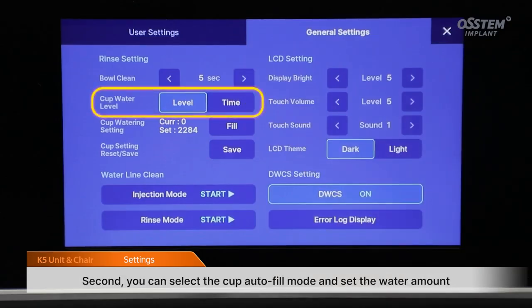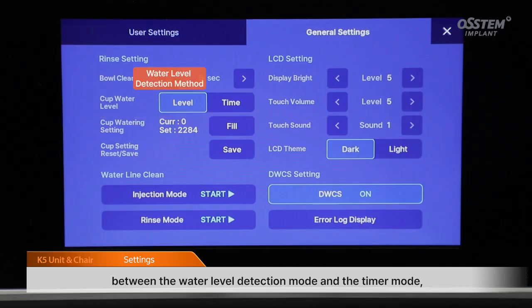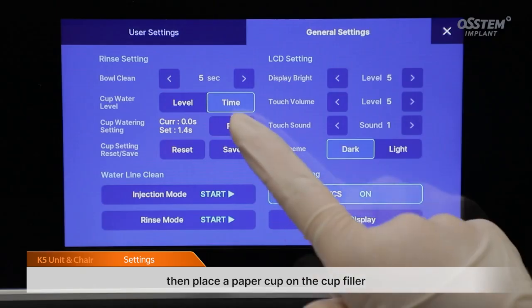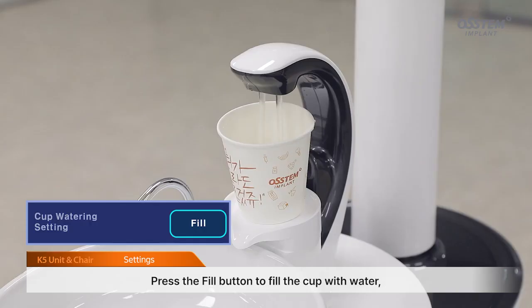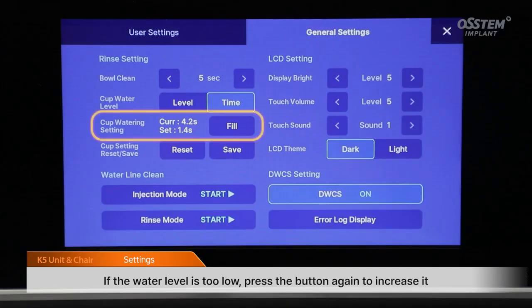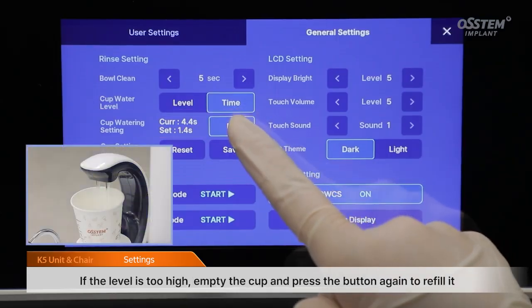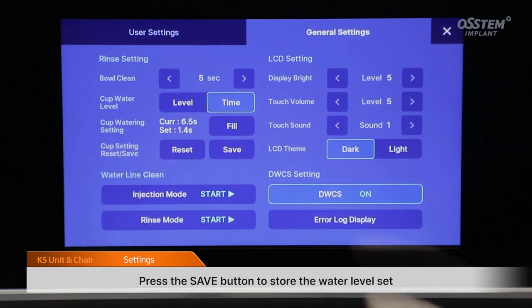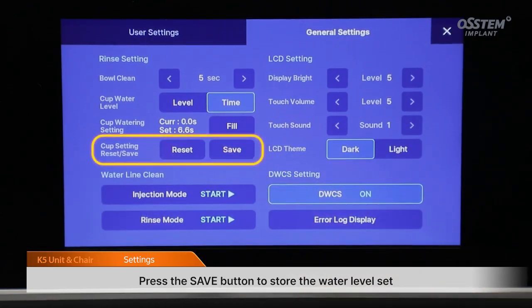Second, you can select the cup autofill mode and set the water amount. First, choose your preferred method between the water level detection mode and the timer mode, then place a paper cup on the cup filler. Press the fill button to fill the cup with water, and release the button once it reaches the desired level. If the water level is too low, press the button again to increase it. If the level is too high, empty the cup and press the button again to refill it. Press the Save button to store the water levels set during the test as a level or time value.